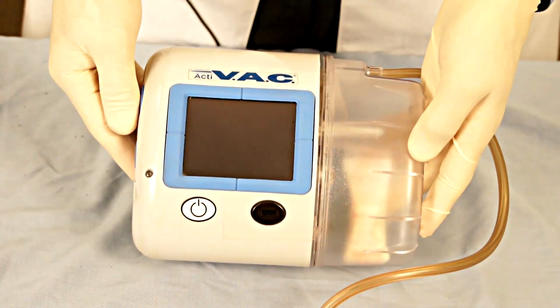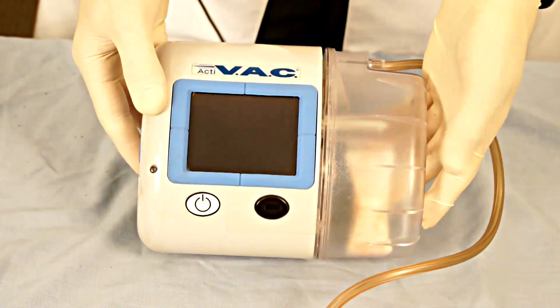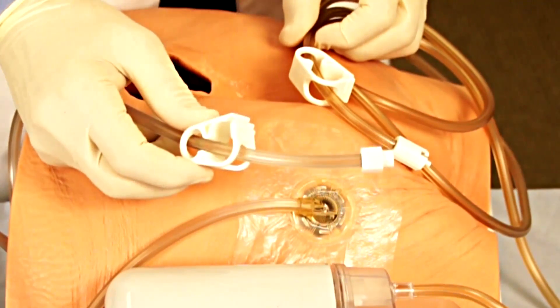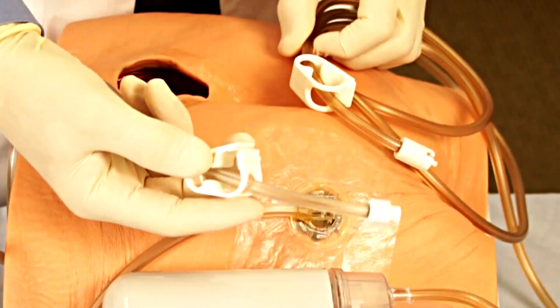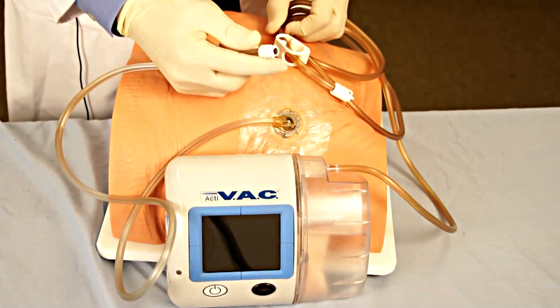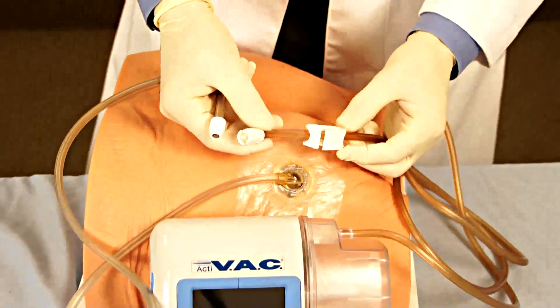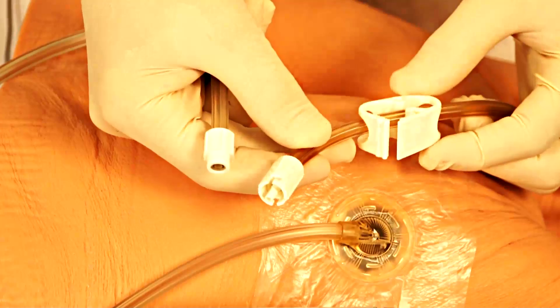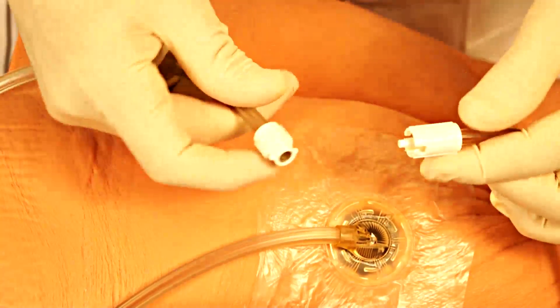At this point, the machine is now ready to be connected to the tubing that has been previously attached to the patient's wound. The tubing attached to the patient model, or in your case your patient's wound, is supplied with a closure device as well as a locking connection. Similarly, the canister that attaches to the generator has a matching paired locking device as well as an interlocking connection.